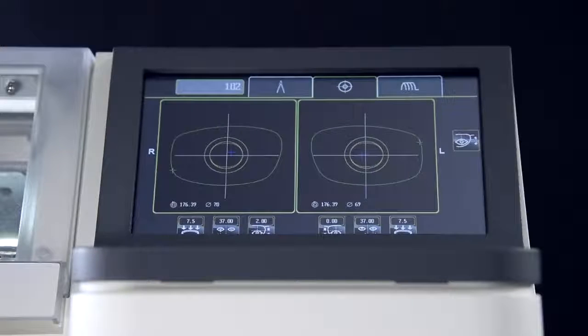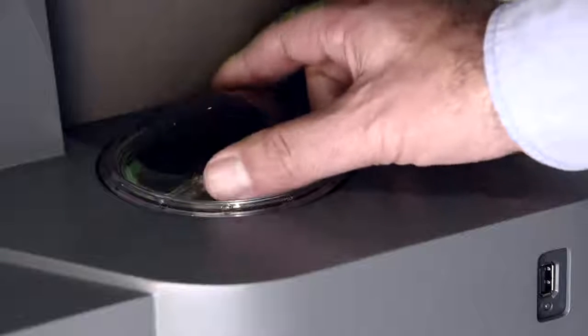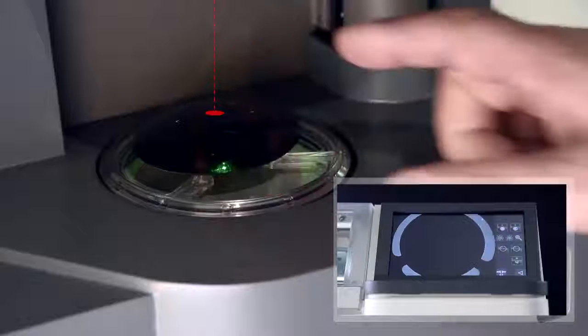Now that we know the gravity point, we block on this point. Blocking in this manner produces the exact one-to-one reproduction of the shape for finishing.